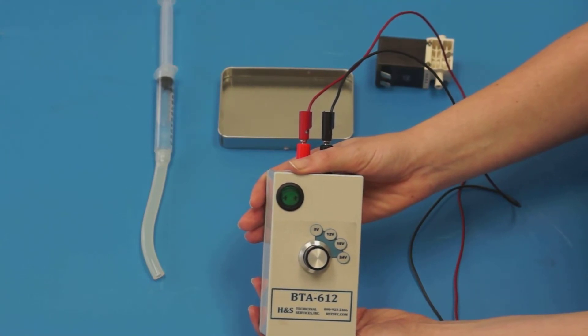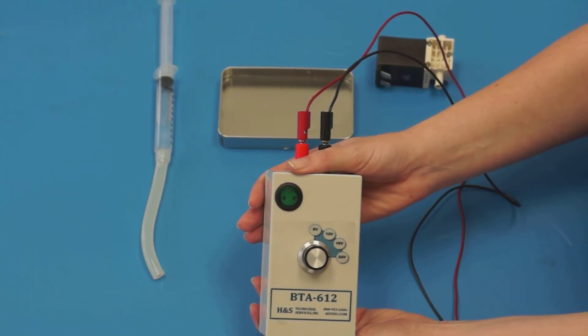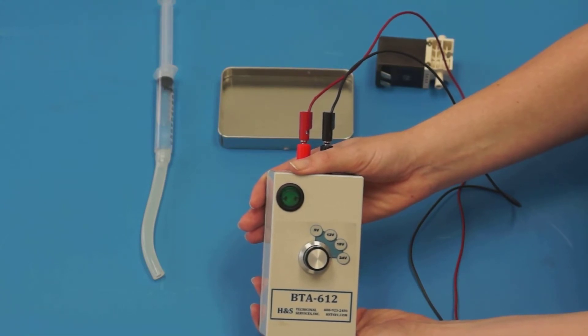Compact and simple to use, this device creates time efficiency verifying the operational function of dialysis motors, pumps, and valves.